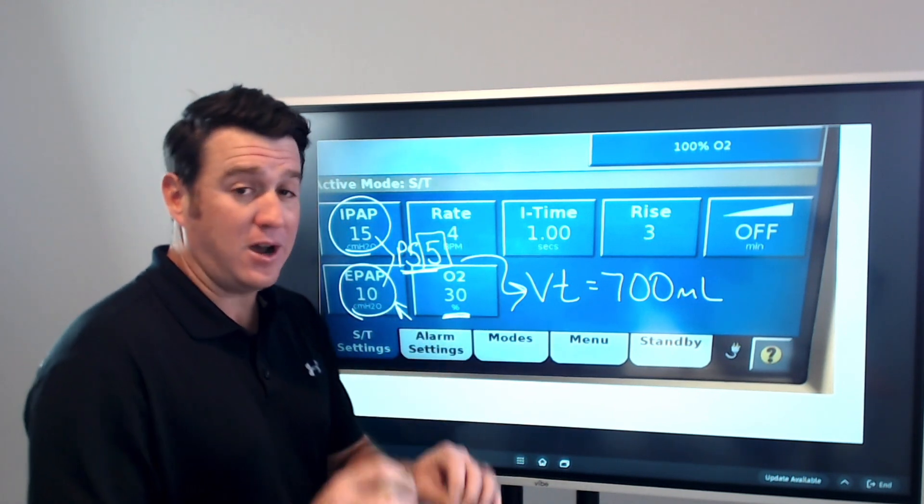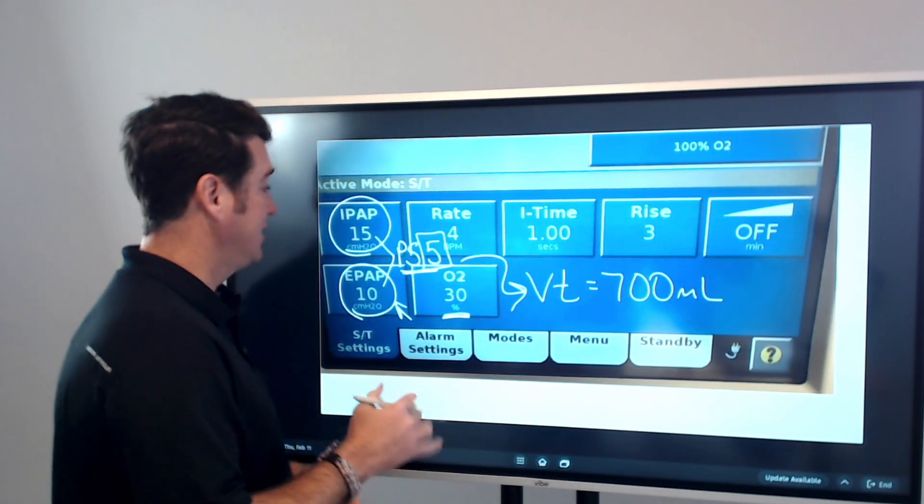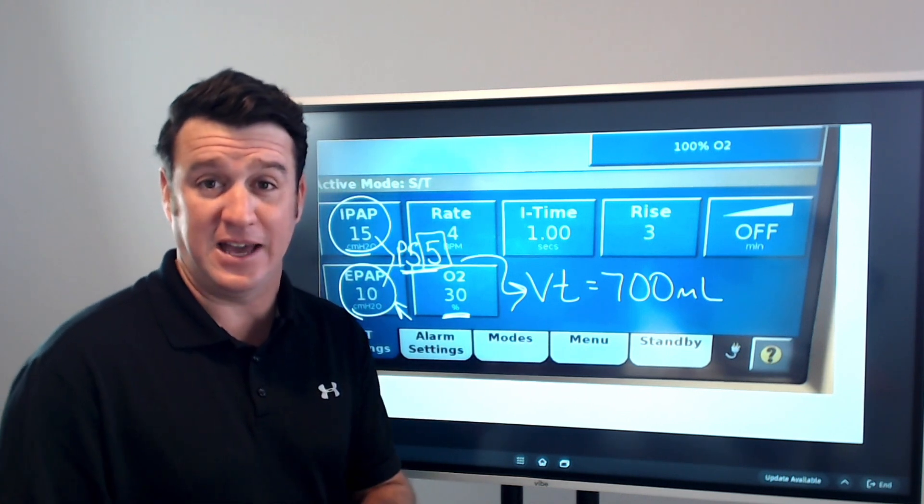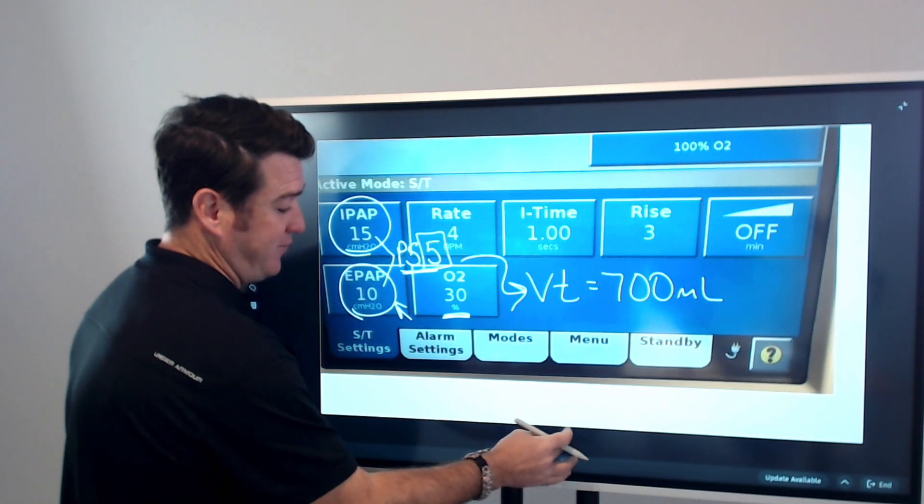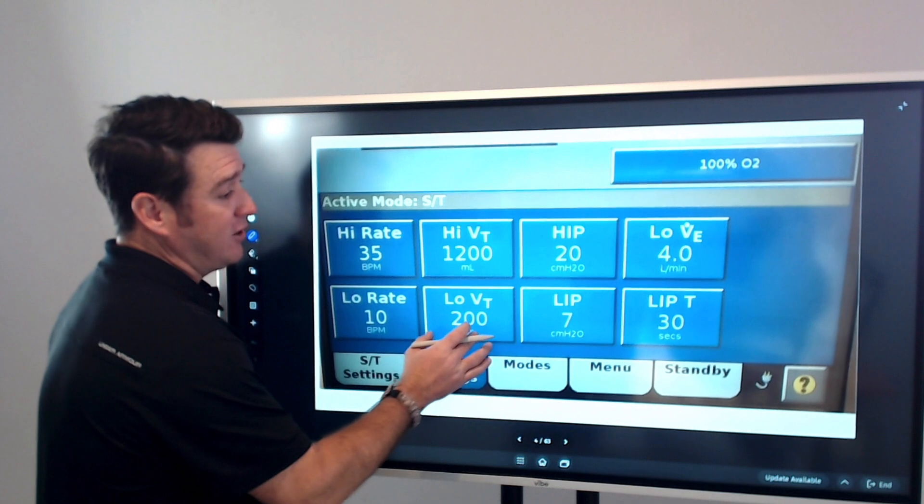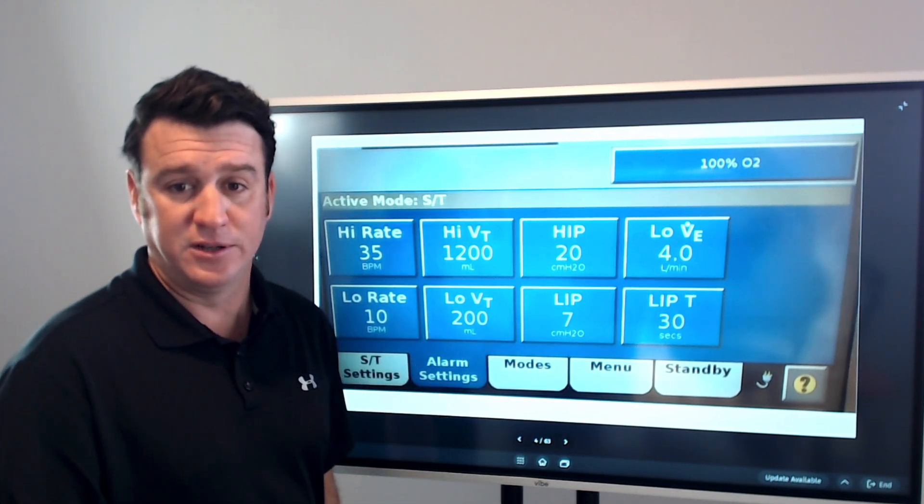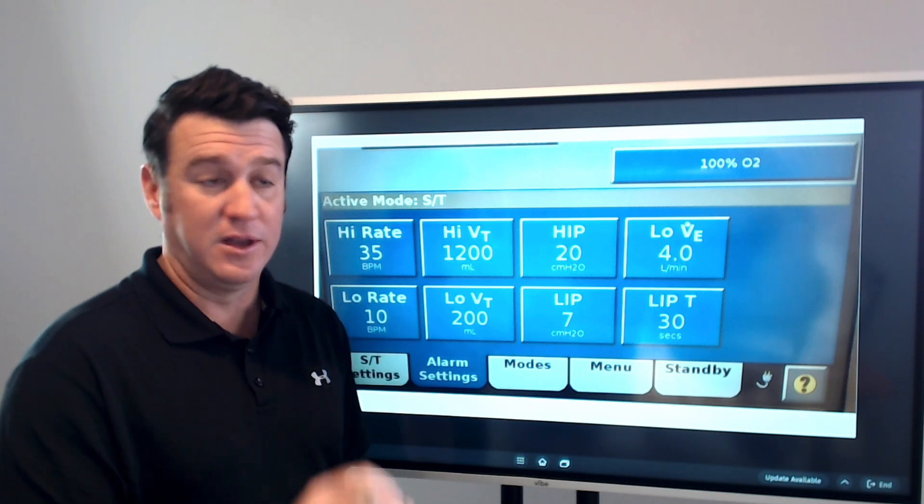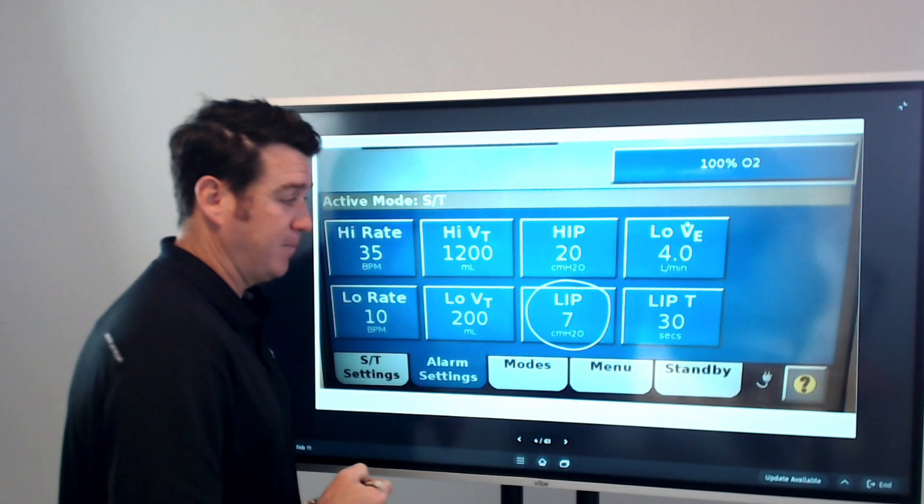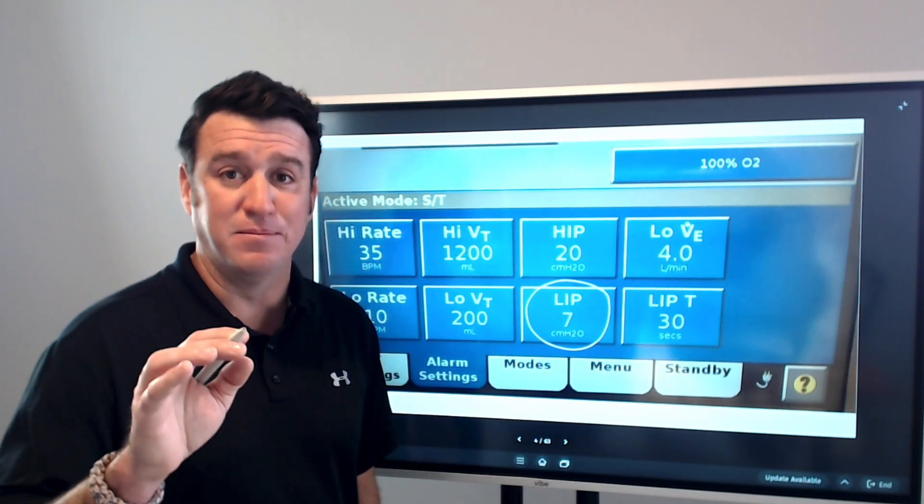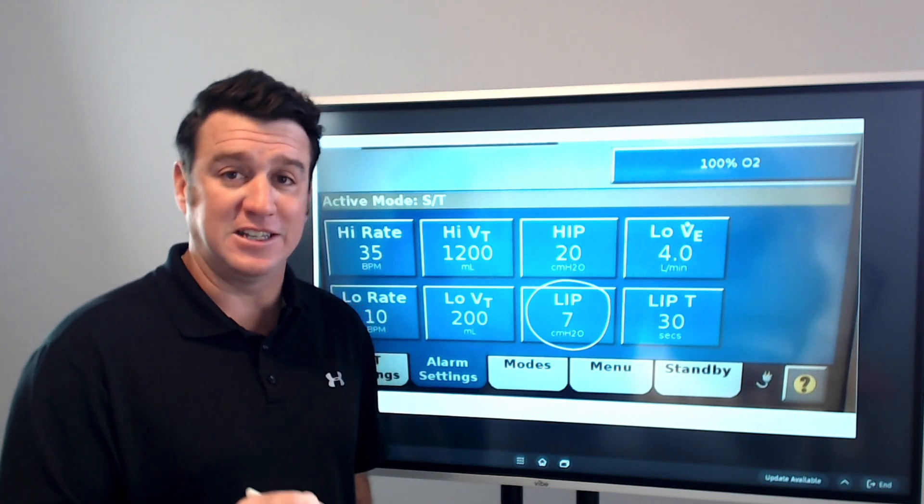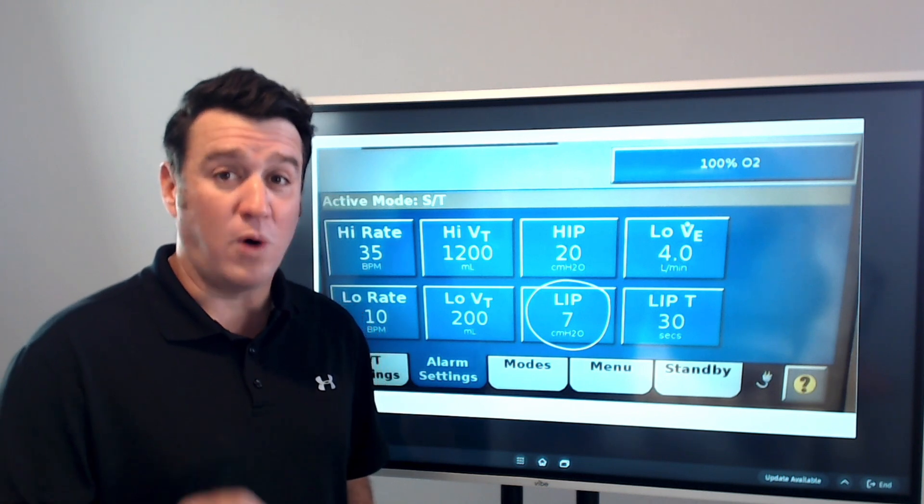Now, what I'm talking about today, what I want to show you, and the reason I set this up talking about IPAP and EPAP is because you're going to want to remember these settings. When we go to the alarms, this is what we find. Several of these alarms could probably be adjusted, but the big one that I want to talk about is the low inspiratory pressure alarm. It is in my observation that this is the most often misset alarm on the V60 during non-invasive ventilation.